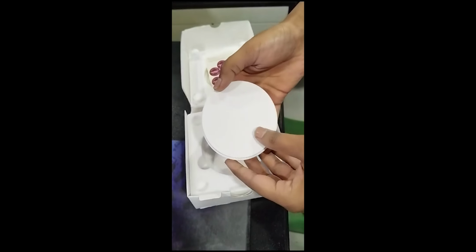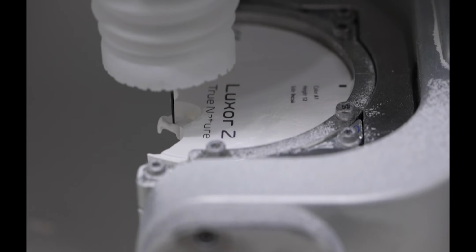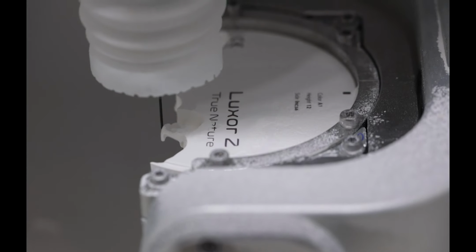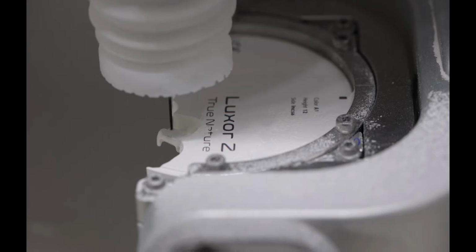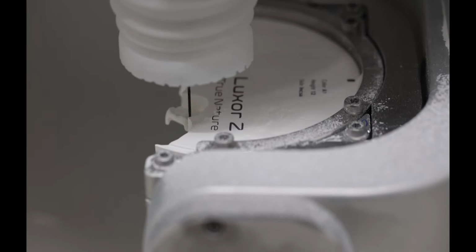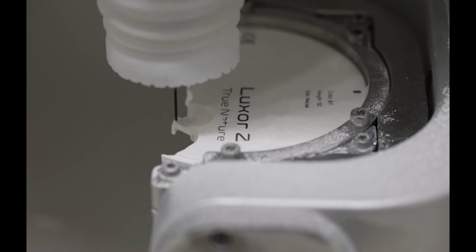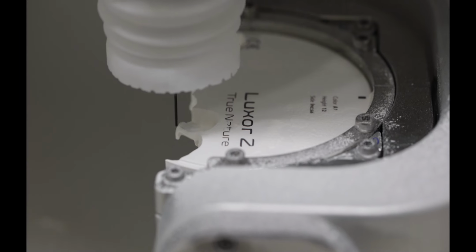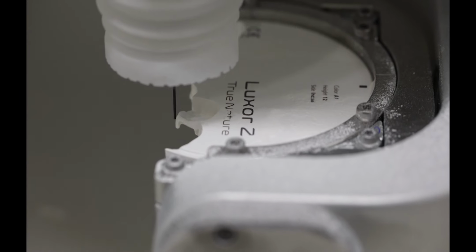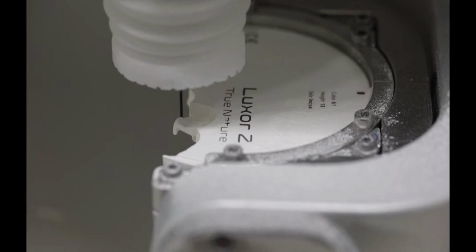This is the blank for the zirconia. So the zirconia is in a stage where it's softer, and in that soft stage it needs to be milled. We cannot mill the zirconia directly as it's very hard. So you take one of these blanks and basically mill them into however many units you want, whatever shape. Again, it's very accurate. And you can see it's slowly milling it in layers. You can see a crown being milled there.